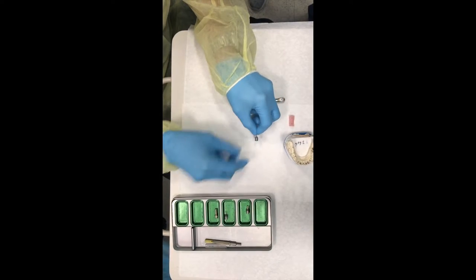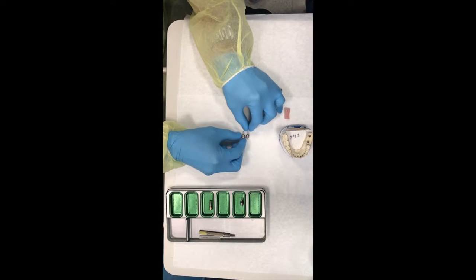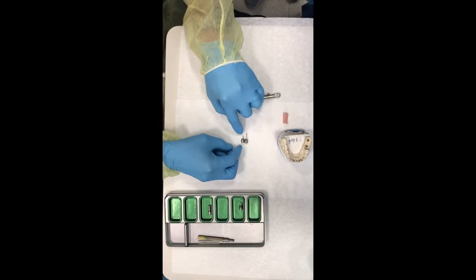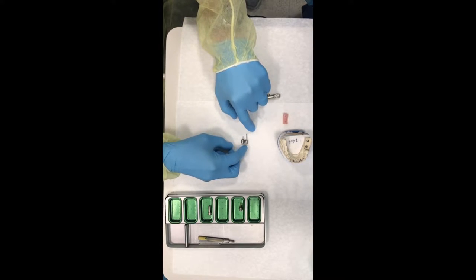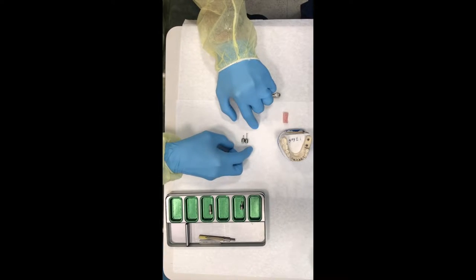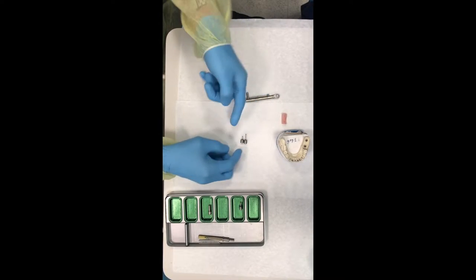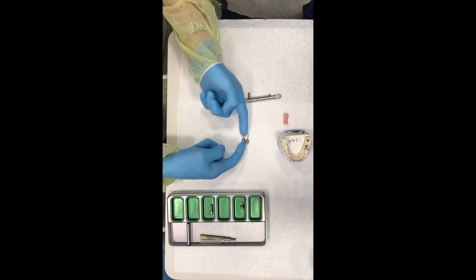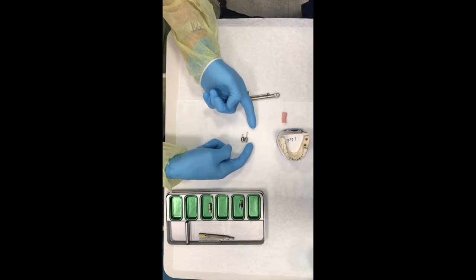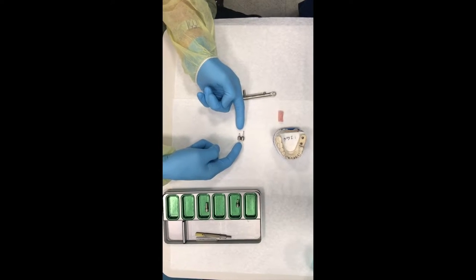This is a Straumann driver set. I have two of the three drivers to come with the set, and the drivers are, each of them, six millimeters longer than the one previous. You have a short, a medium, and a long. And the long one is 27 millimeters, 21 millimeters, and 15 millimeters in length.